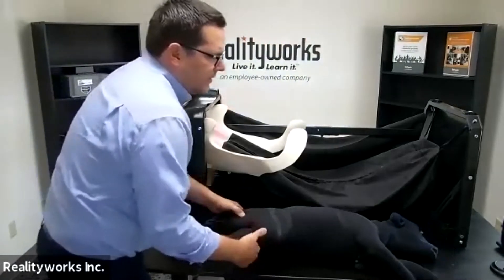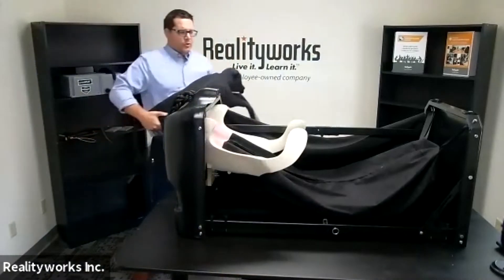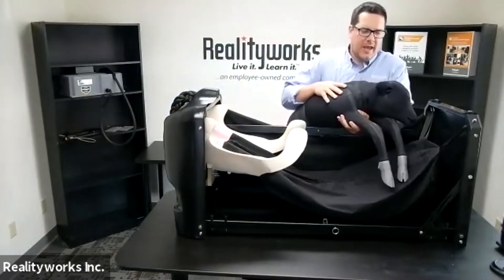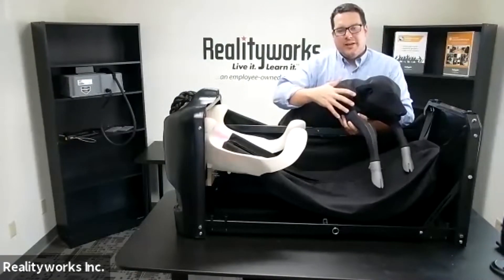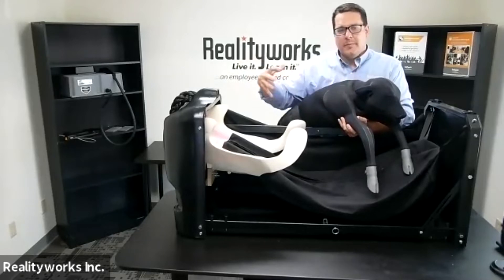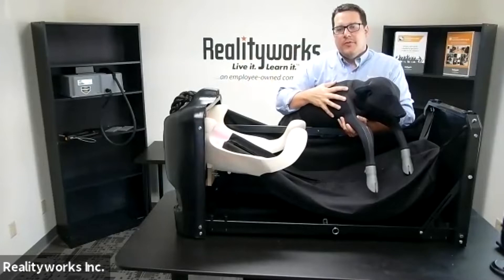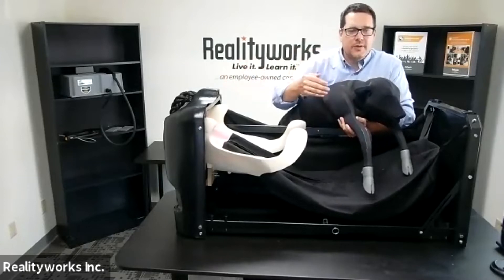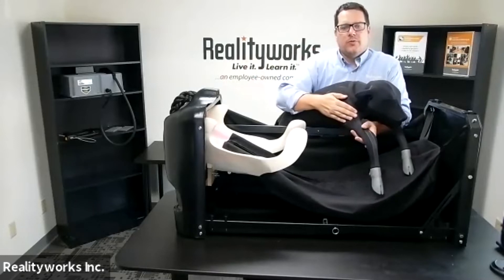I'm going to take our calf — this is a good heavy calf. It allows you to have real weight and be able to show some of the different features. It's made out of neoprene so it slides easily, giving that understanding of the liquid and what's coming out without the mess. Students can get that understanding without having to clean up the floor every single time you birth.